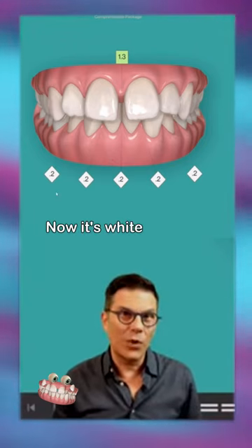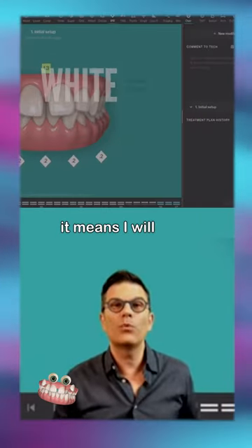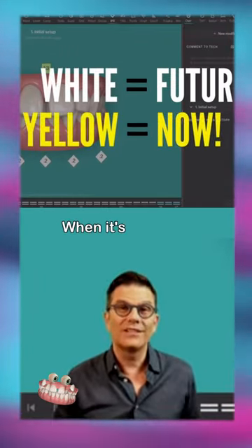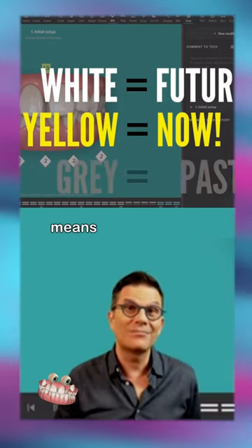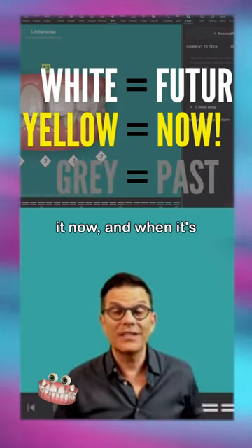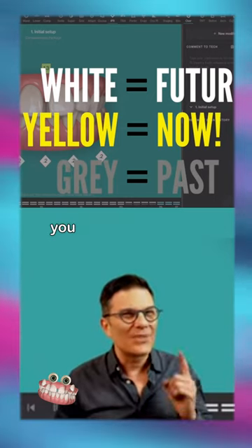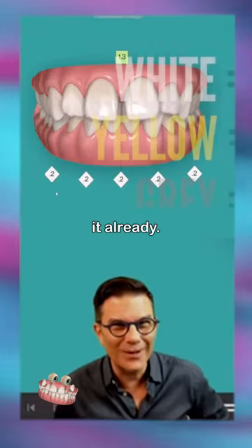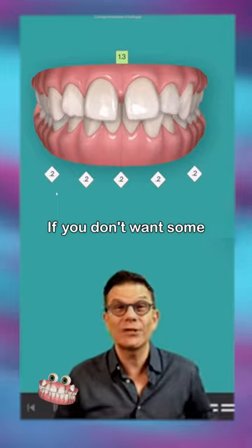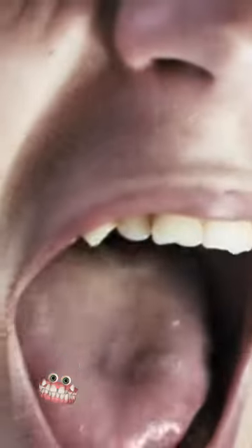It's white because it means I will have to do some IPR eventually. When it's yellow, it means you have to do it now. And when it's grayed out, it means you should have done it already — if you don't, some weird things can happen.